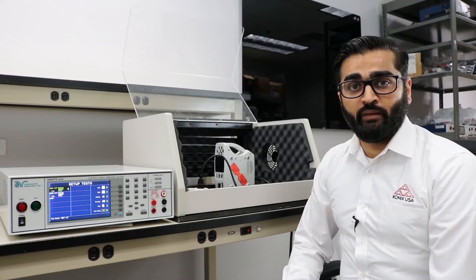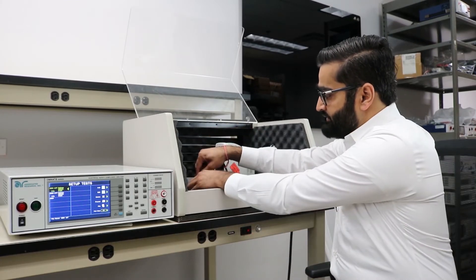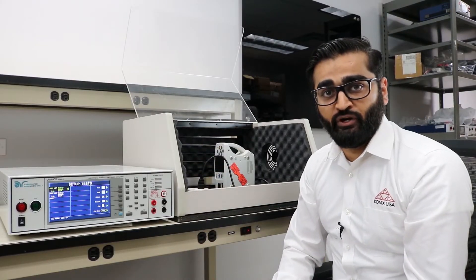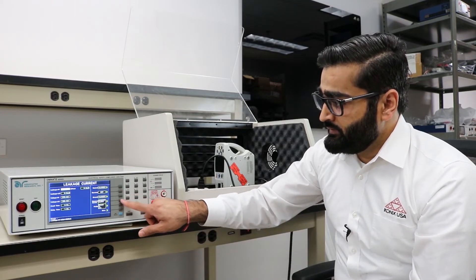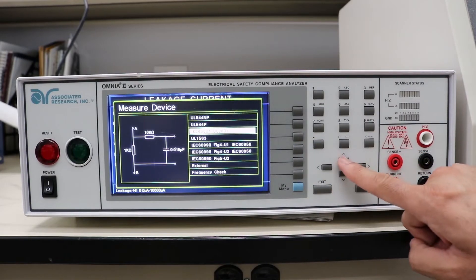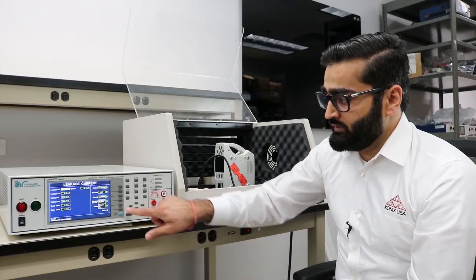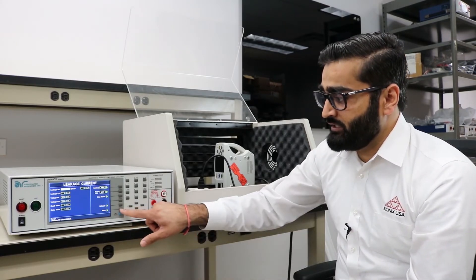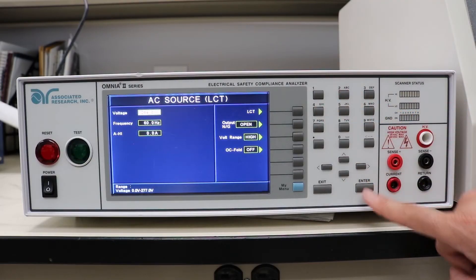In this part of the video, I'll be demonstrating a simple earth leakage test on a medical device. First, we need to connect the device under test to the mains input cable to the adapter box. Second, we want to ensure that the measuring device is selected to the proper standard — in this case, we're going to select 60601, the medical equipment standard. Next, we're going to ensure that the voltage being outputted from the Omnia series instrument through the internal power supply is set to 264 volts, which allows the device to be operated at 110% of the input voltage.